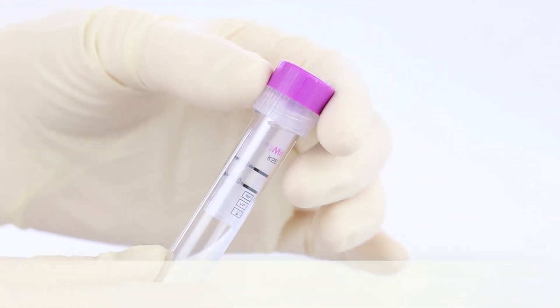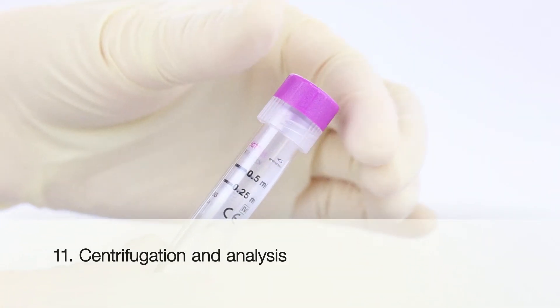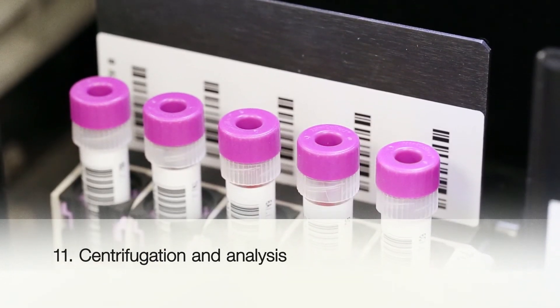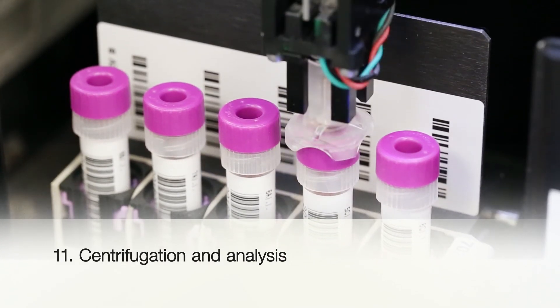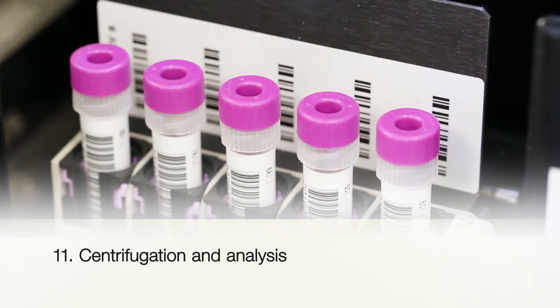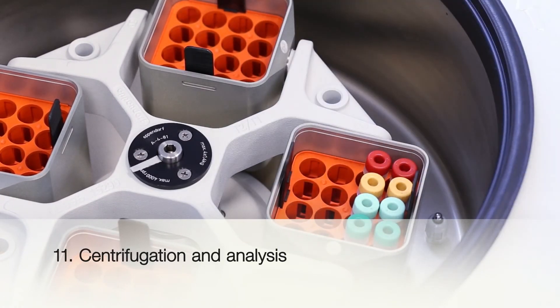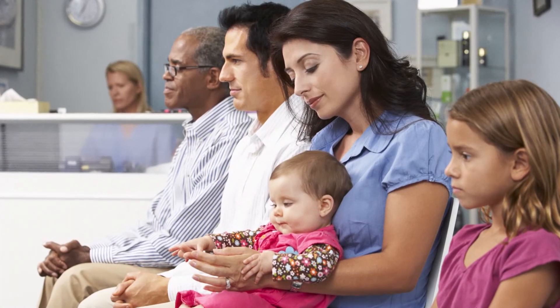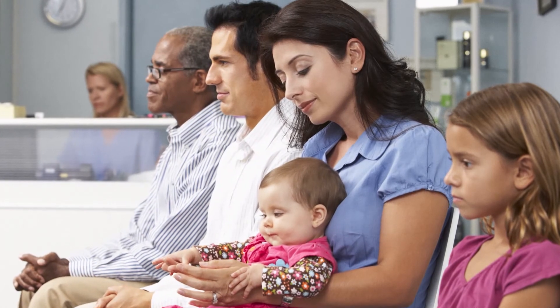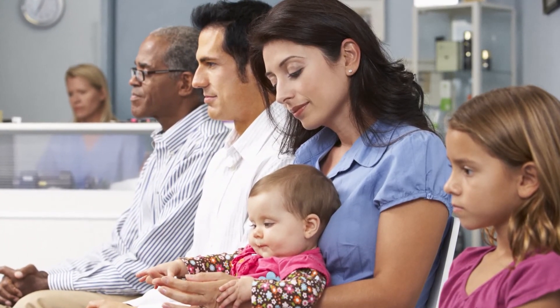When used in combination with a 13 by 75 carrier tube, or preassembled as a complete combination product in 13 by 75 format, MiniCollect capillary blood collection tubes can be used as primary tubes, making them suitable for use with commonly used centrifuges and analyzers. MiniCollect is the ideal system for different patient groups and is perfectly suited for collecting, transporting, and automatically processing capillary blood.